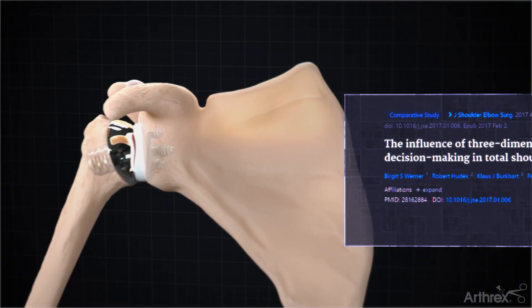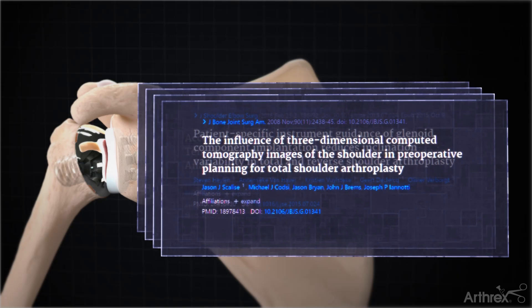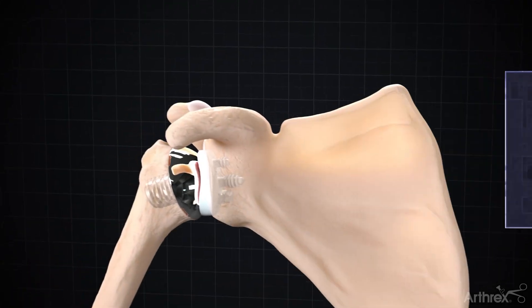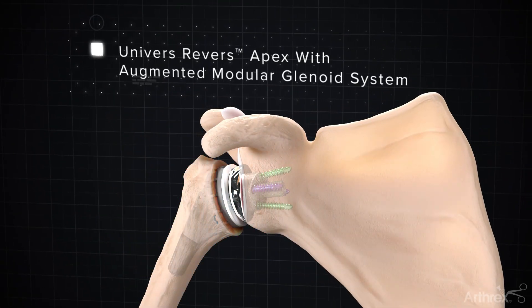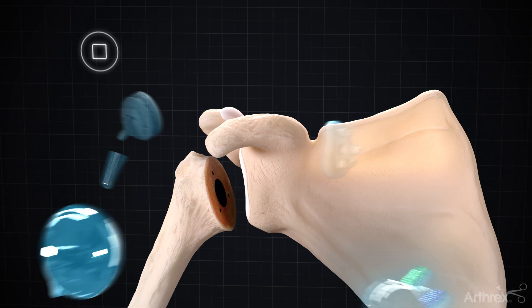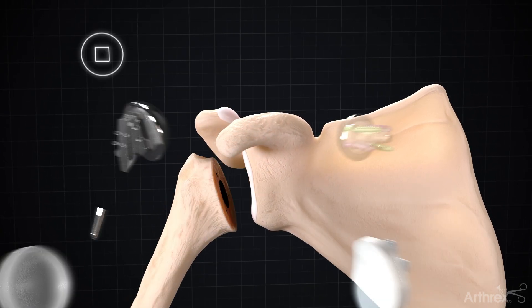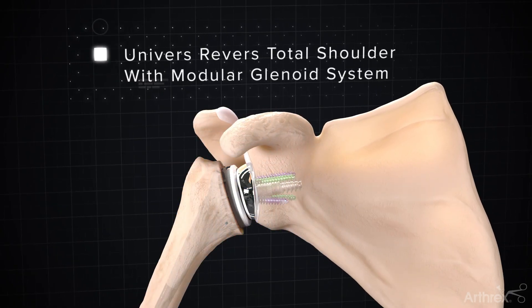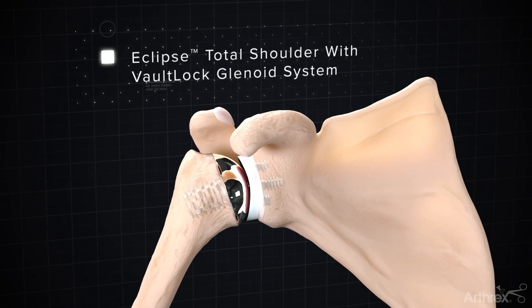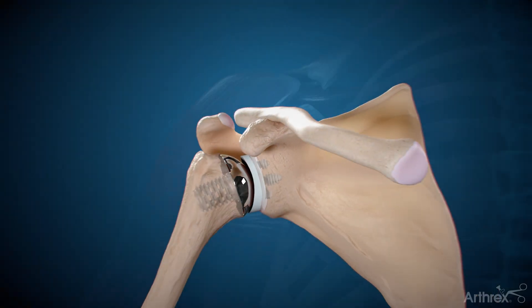Research has shown that this technology for shoulder replacement surgery can improve the selection and position of the implants and therefore may minimize the chance of complications. Since this technology may also result in reduced operating times, there could potentially be less anesthesia needed and a speedier return home following surgery.